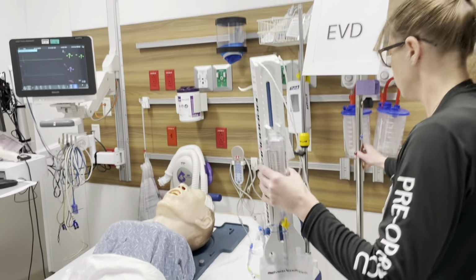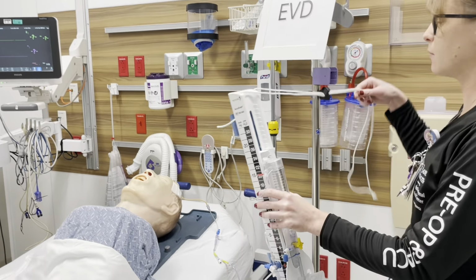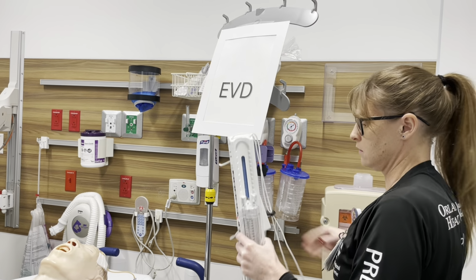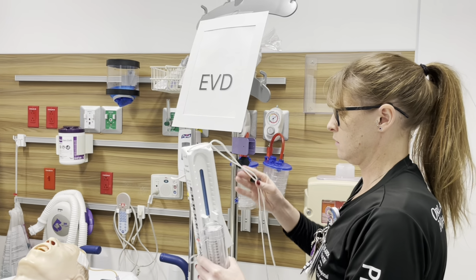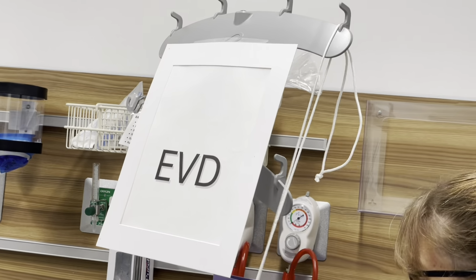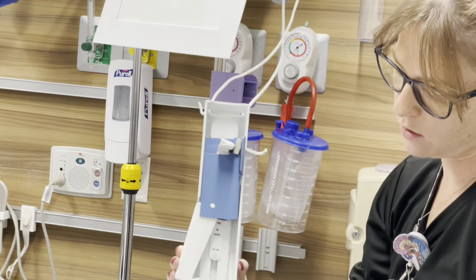Okay. So this comes with a couple of different safety devices. You can go ahead and put this up here so it's not going to fall. Actually, you're going to go ahead and undo this. You're going to put this up here so it doesn't fall like that. And then it has clips on the back. This is going to help open up your clips.